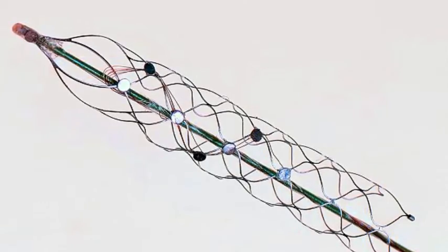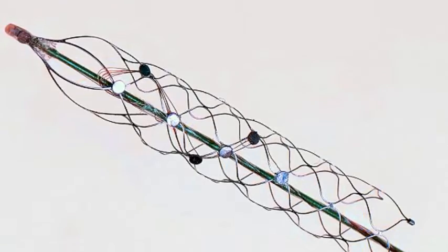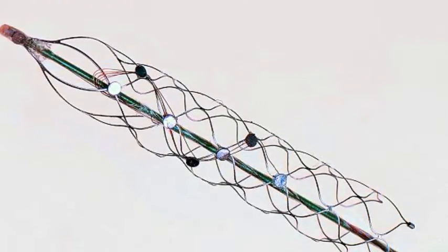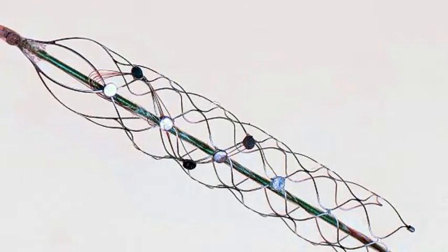The bionic cord consists of a paperclip-sized implant that lets wearers control an exoskeleton with just the power of thought. The implant consists of a stent-based electrode, or stentrode, that's implanted within a blood vessel in the brain.